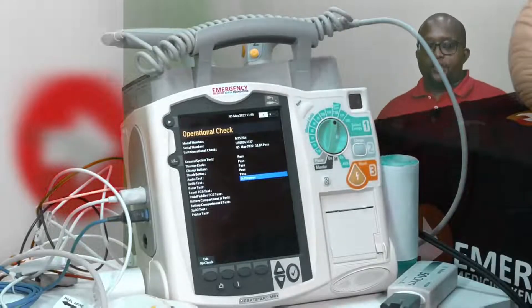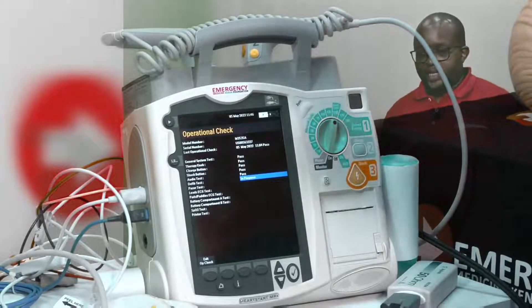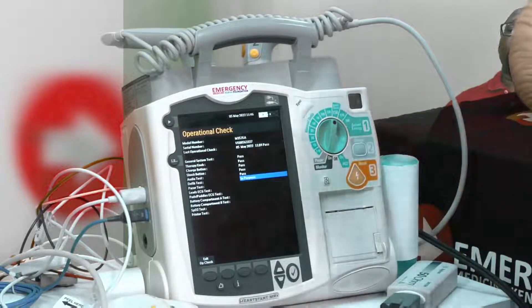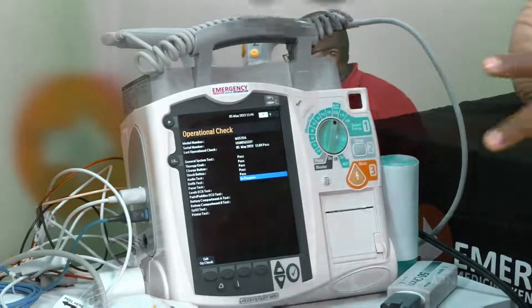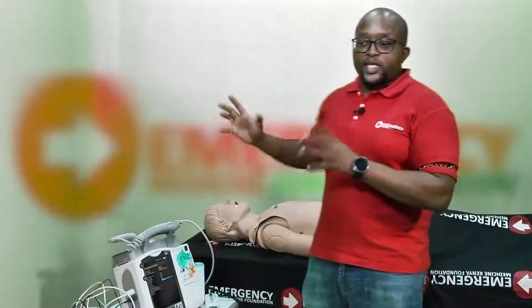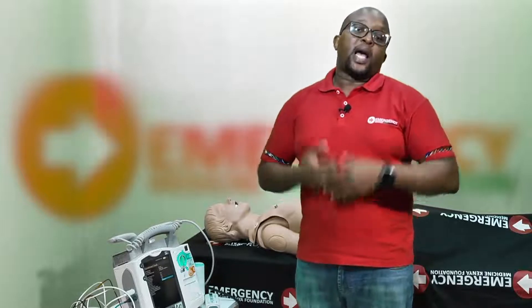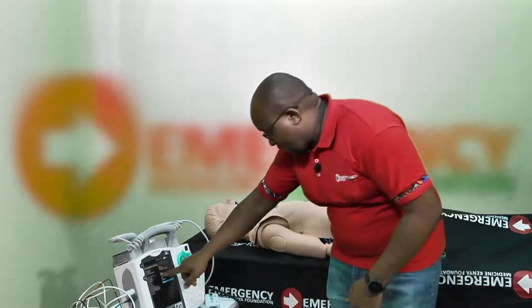The machine is now going through internal checks. Every defibrillator must be checked every shift change — if you have two shifts, check it twice. This is critical because the treatment for ventricular fibrillation is defibrillation, and if the defibrillator isn't working your patient will have adverse outcomes. There are cases where clinicians have faced prosecution simply because they forgot to check the defibrillator.